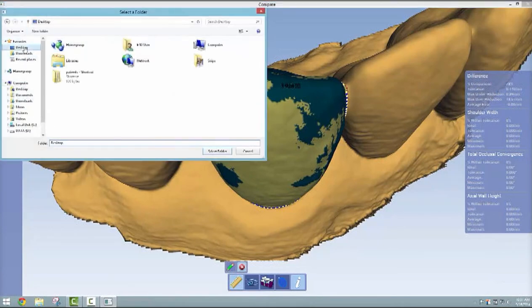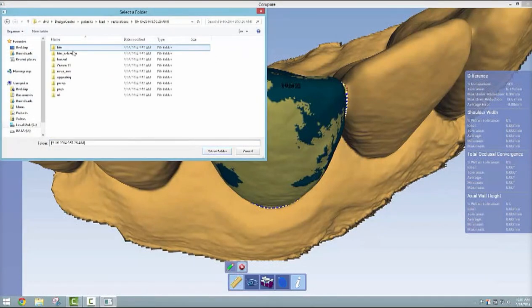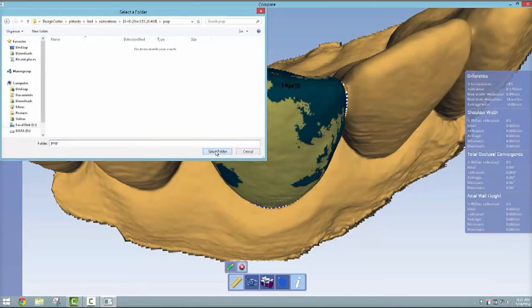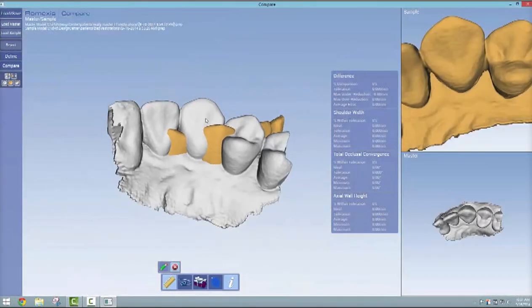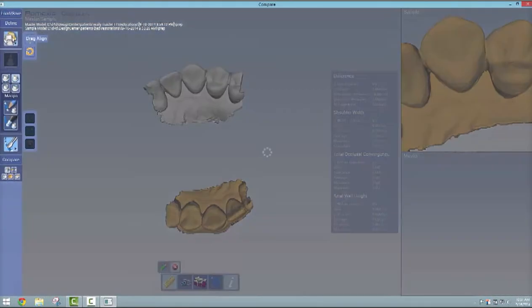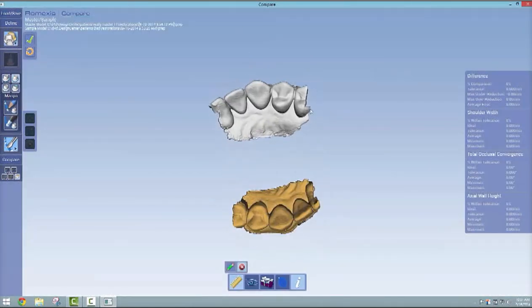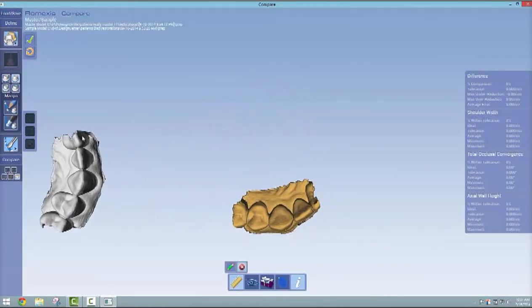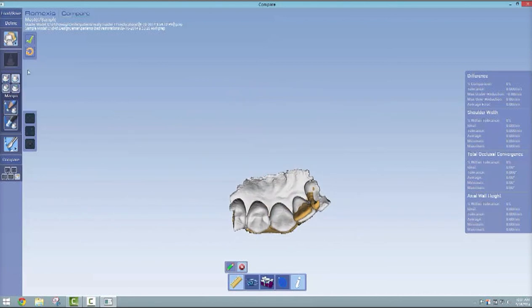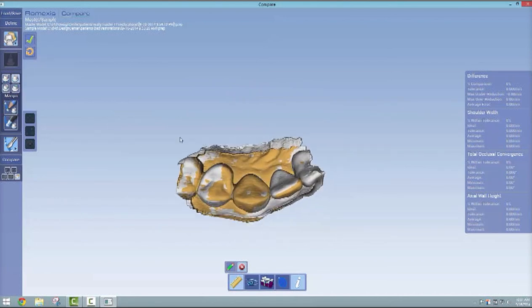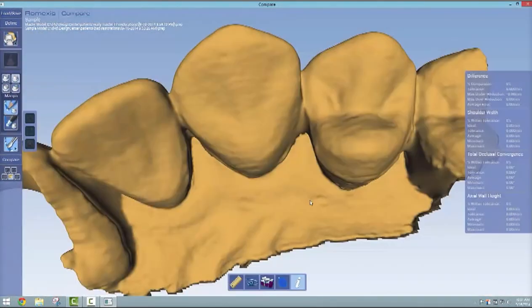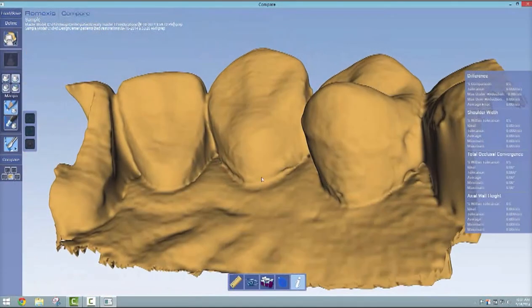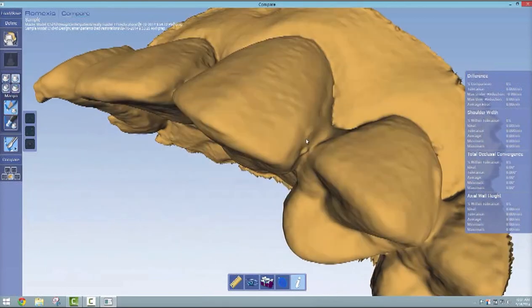Let's see what happens when we load something that was scanned backwards. This is what you get: models that are just aligned differently, so you have to finagle with it. It's definitely easy to do after you practice for a while, but it's just something you don't want to do all the time. It's better just to scan it right to begin with.